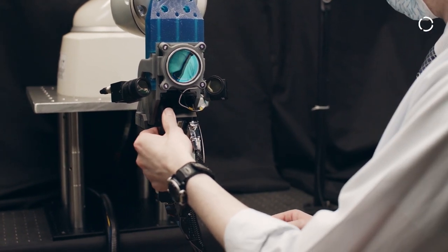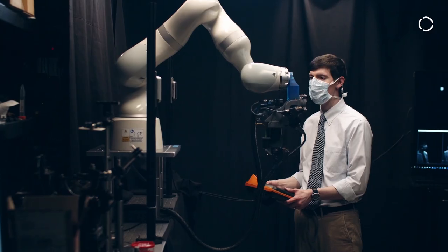The key innovations are an OCT scanner that is on a robotic system, something that's never been demonstrated before, and an active tracking scanner that works seamlessly with the robot together.